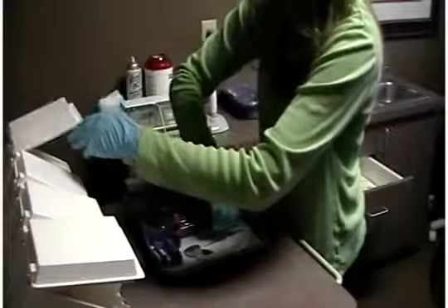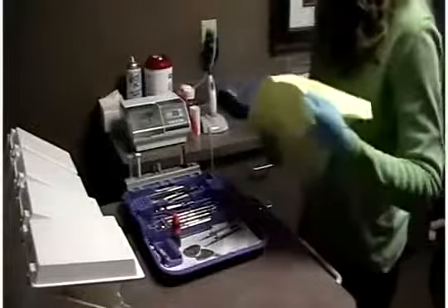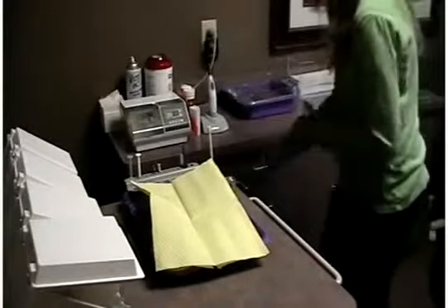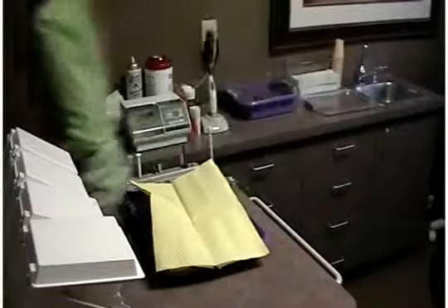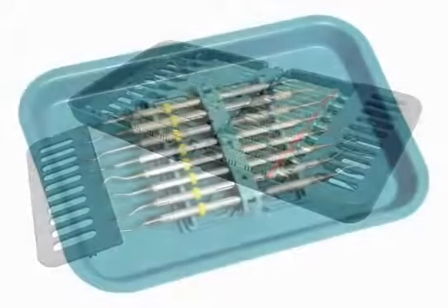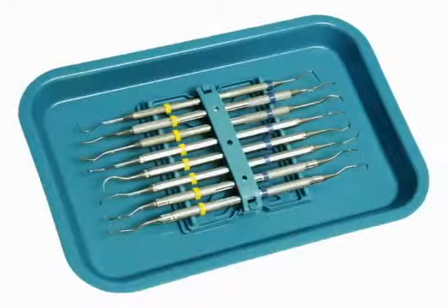You can recover your tray with a lock-on cover or bib until the patient's in the chair and you are ready for the procedure. To implement a color code system to its fullest, we recommend you ID your instruments. To do so, place color code rings or color code tape on all instruments. This will identify which procedure they are for.